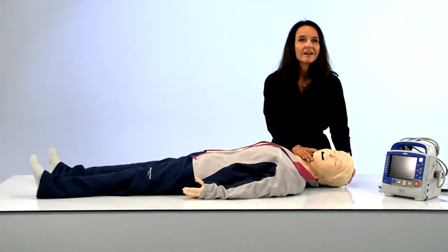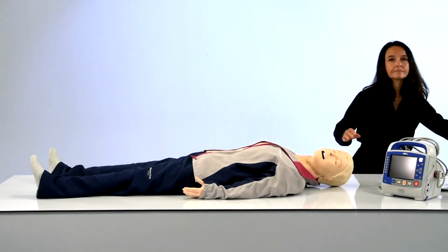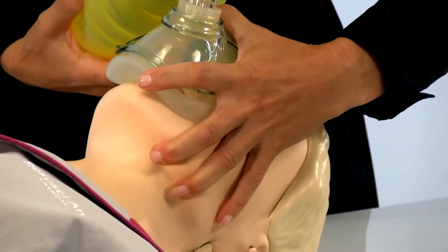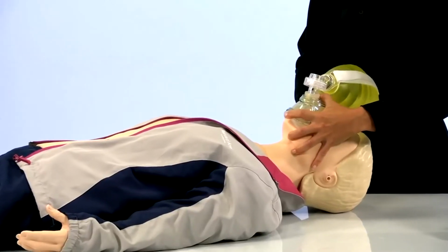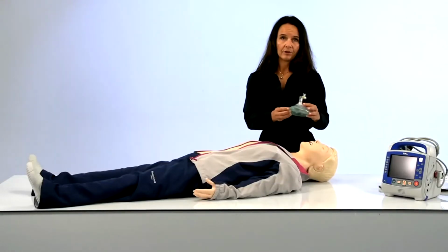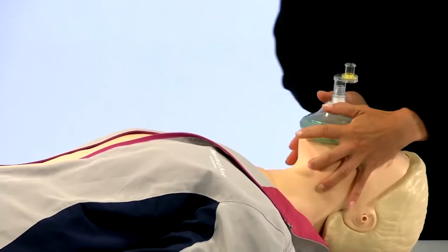By the way, if you don't know the story of Resusci Anne's face, it's a great story for another time or a Google later. Regardless of the head you select, you will be able to perform ventilations using a BVM. Sensors within the mannequin measure ventilation rate and volume. Here you can see the chest rise. You can also do mouth-to-mouth, but then we recommend using Laerdal pocket mask. This is for hygienic reasons, especially in these COVID times, like this.